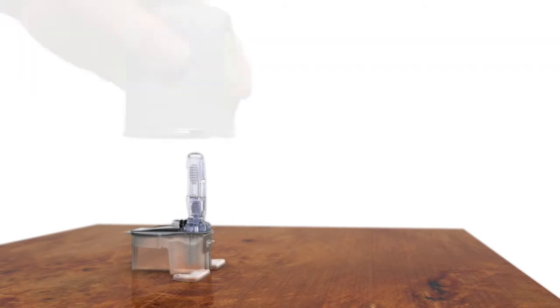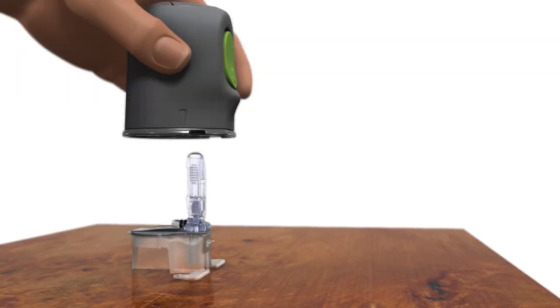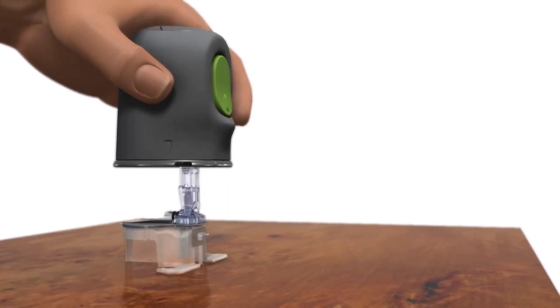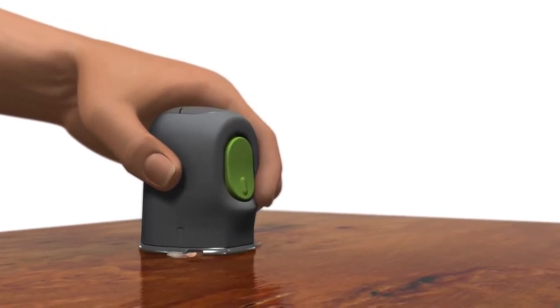Hold the Sertor so the green button is lined up with the arms of the pedestal. Carefully push the Sertor down onto the sensor and pedestal until the base of the Sertor sits flat on the table.